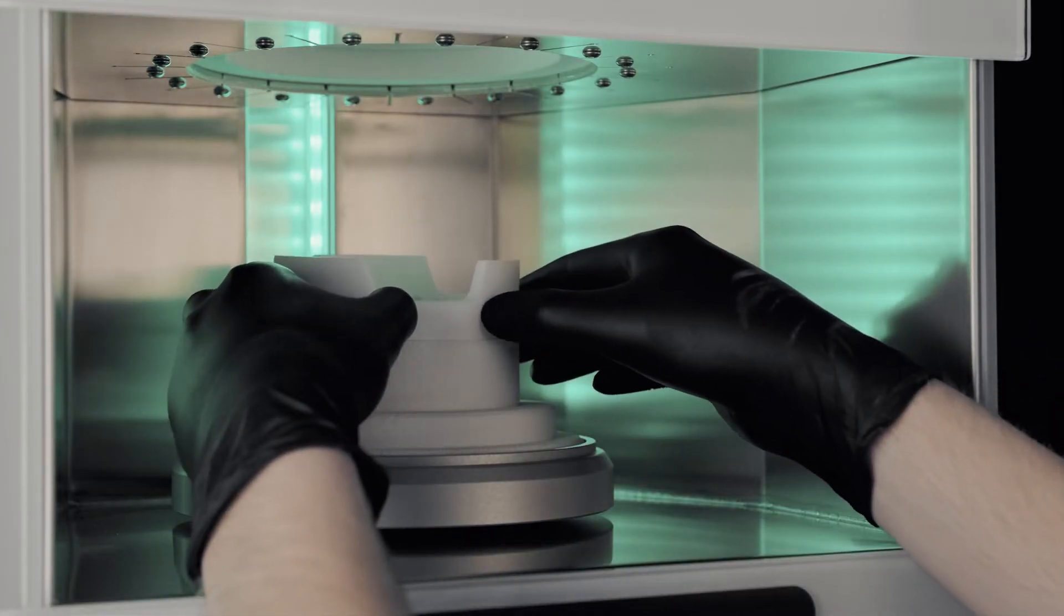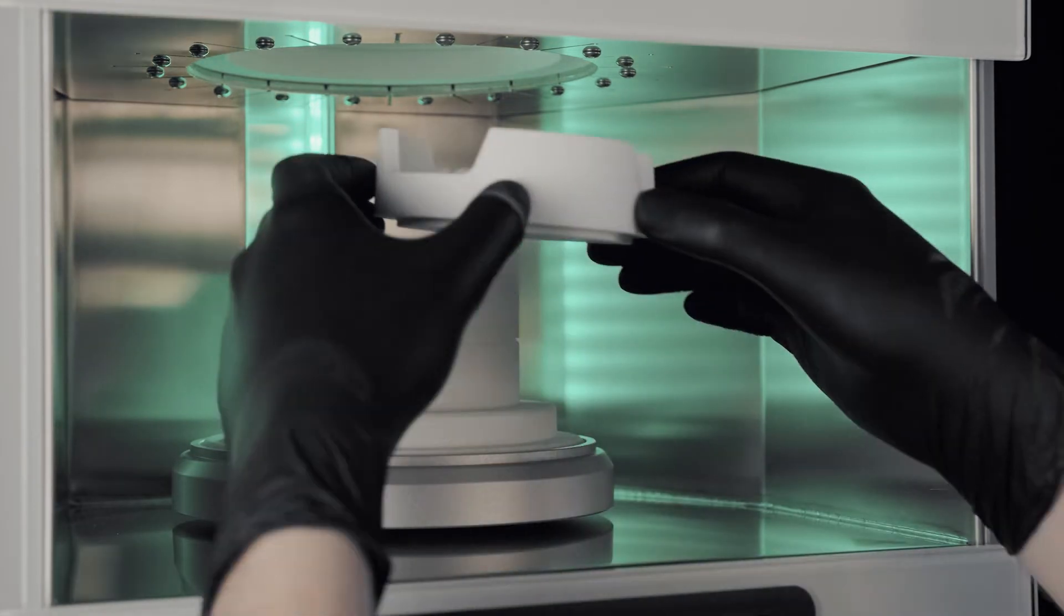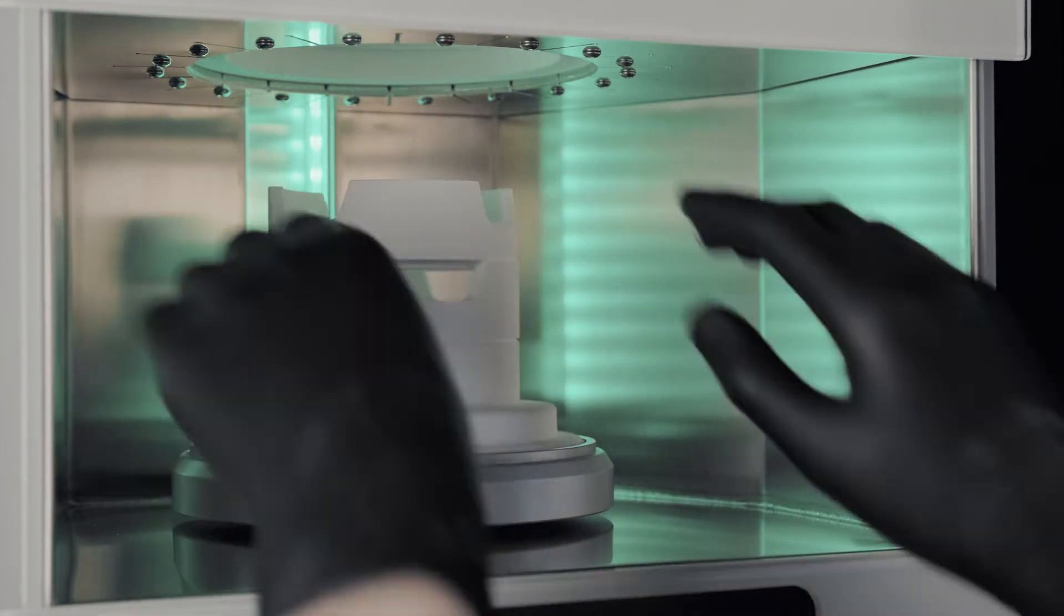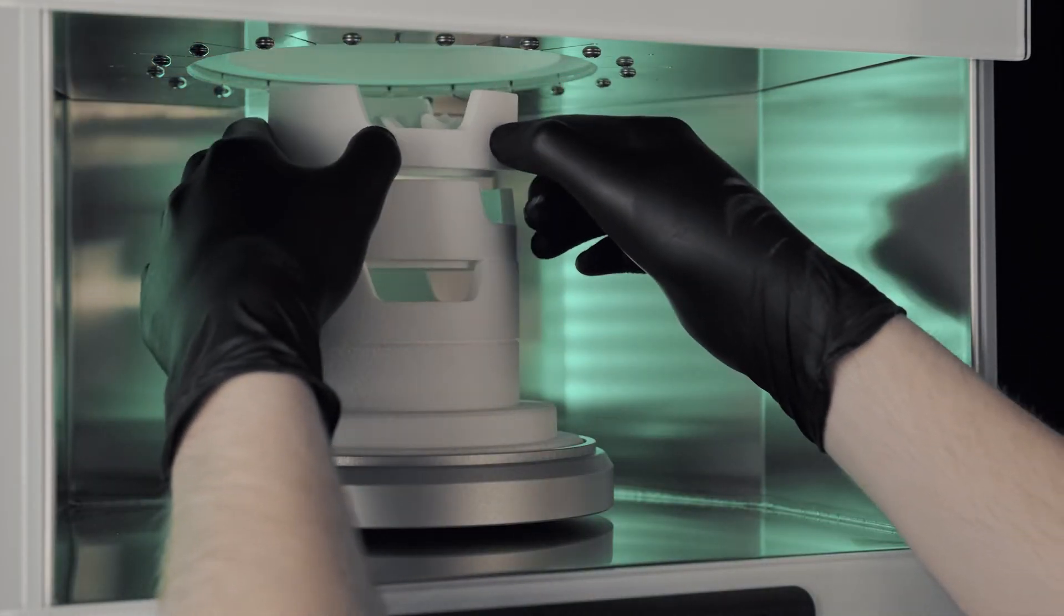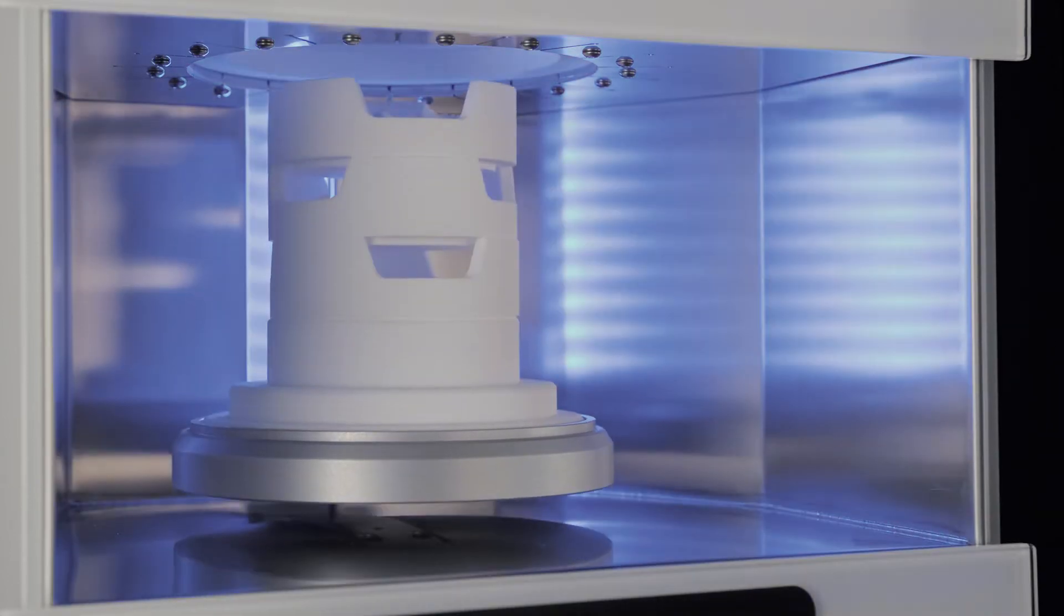The size of the sintering chamber provides enough space to stack three speed trays. In this way, up to 120 zirconia elements can be sintered in a single sintering cycle.